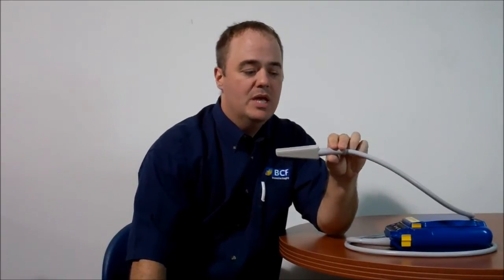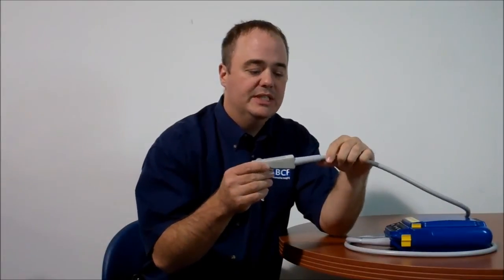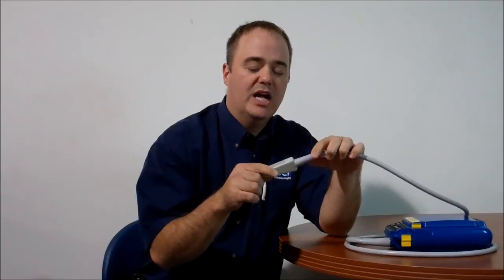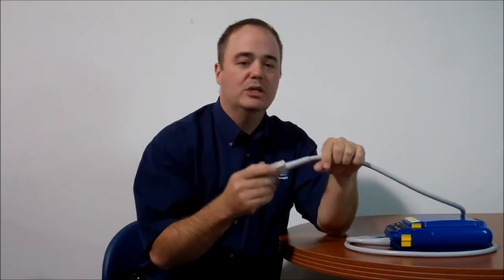This probe is the same probe we've used on our EZscan 1, 2 and now our newest version EZscan 3 machine. Because of the proven reliability and durability of these probes throughout the last 10 years, we are confident in including this probe along with the machine in our new lifetime warranty program.